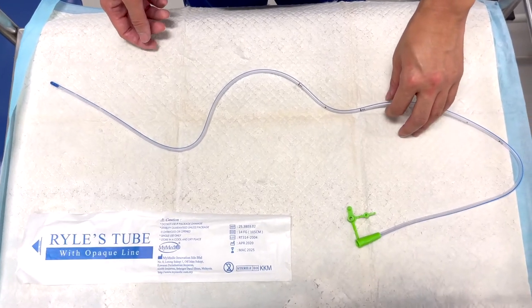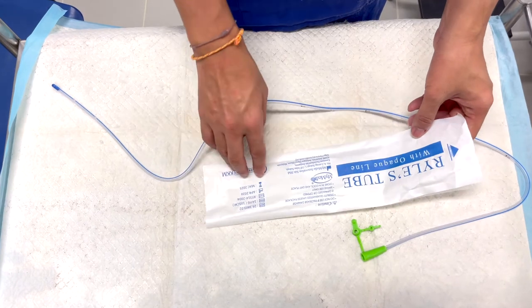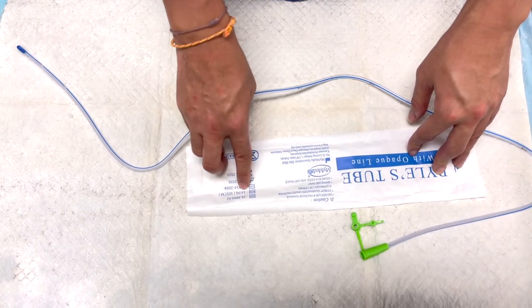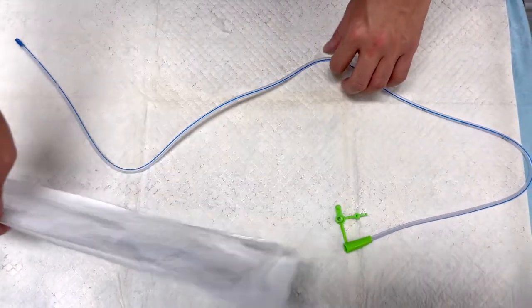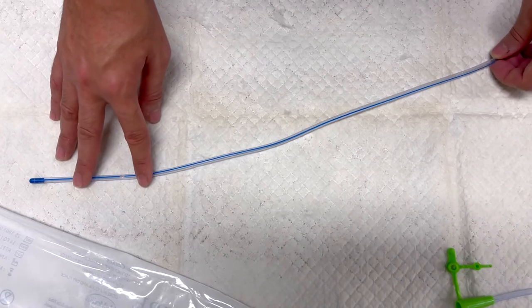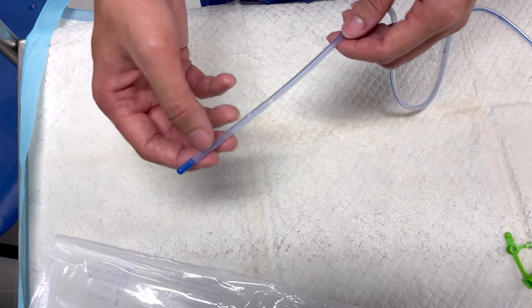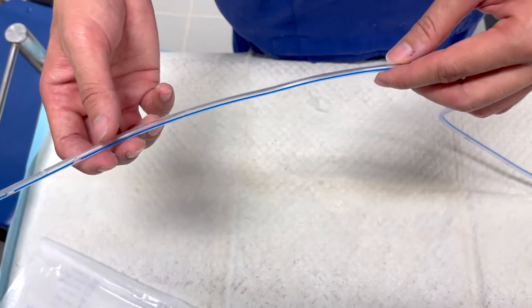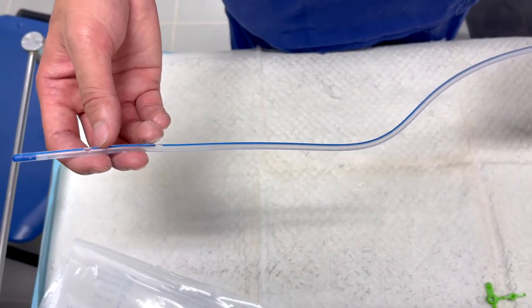Let me explain the anatomy of the nasogastric or Ryles tube. This tube was manufactured in April 2020 with an expiry date of March 2025. The size is 14 French and 105 centimeters in length. The tube contains a radio-opaque line, which is very important as it can be visualized on a chest X-ray. The distal tip contains a small amount of mercury, and there are fenestrations at the distal end for fluid to exit.